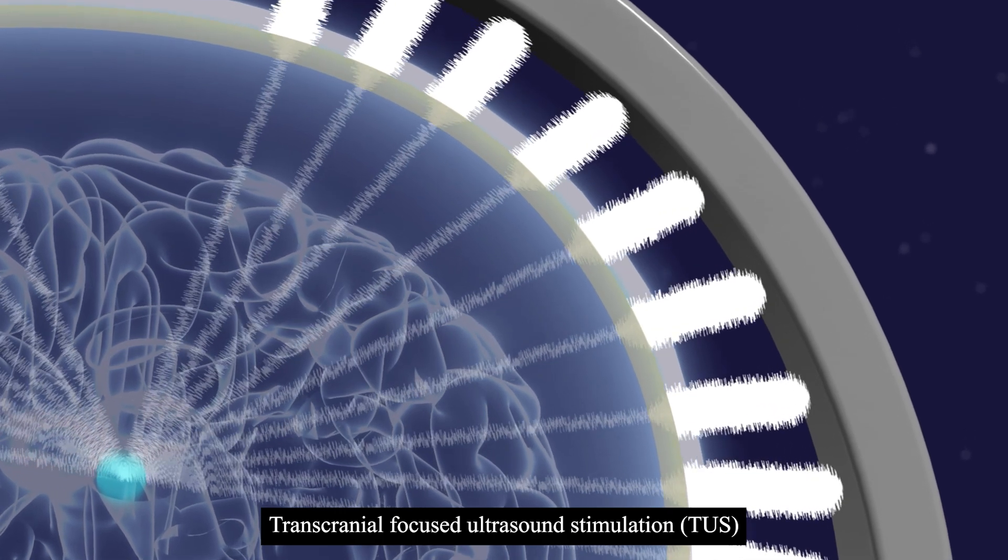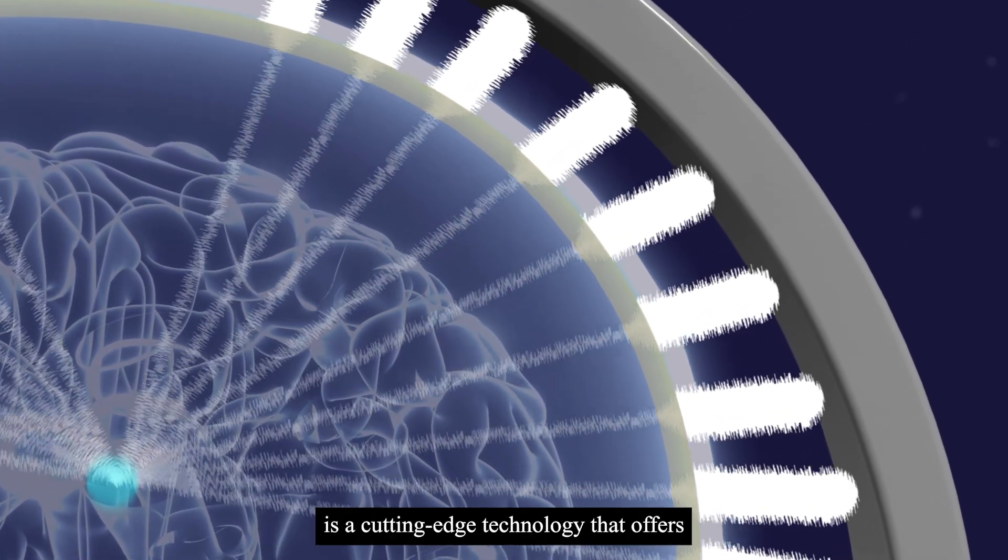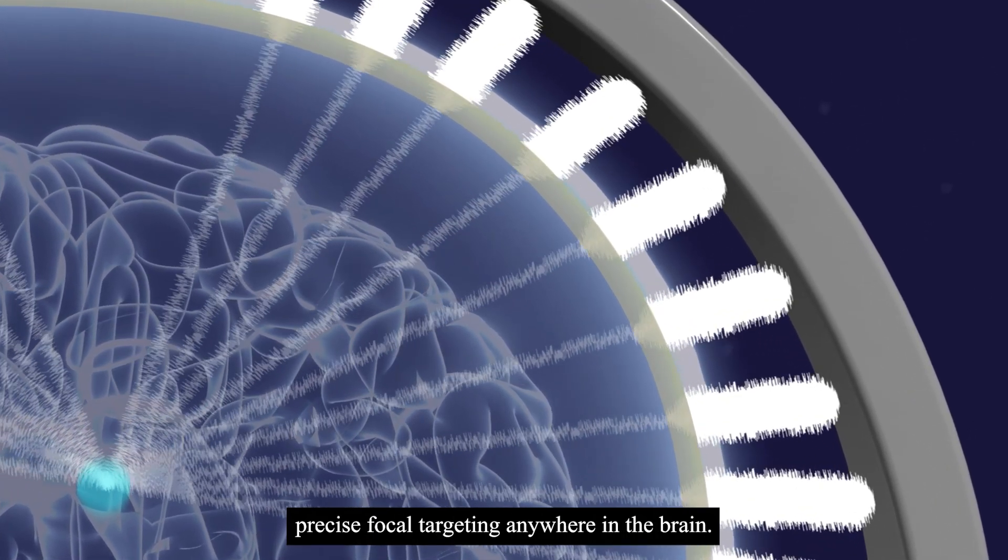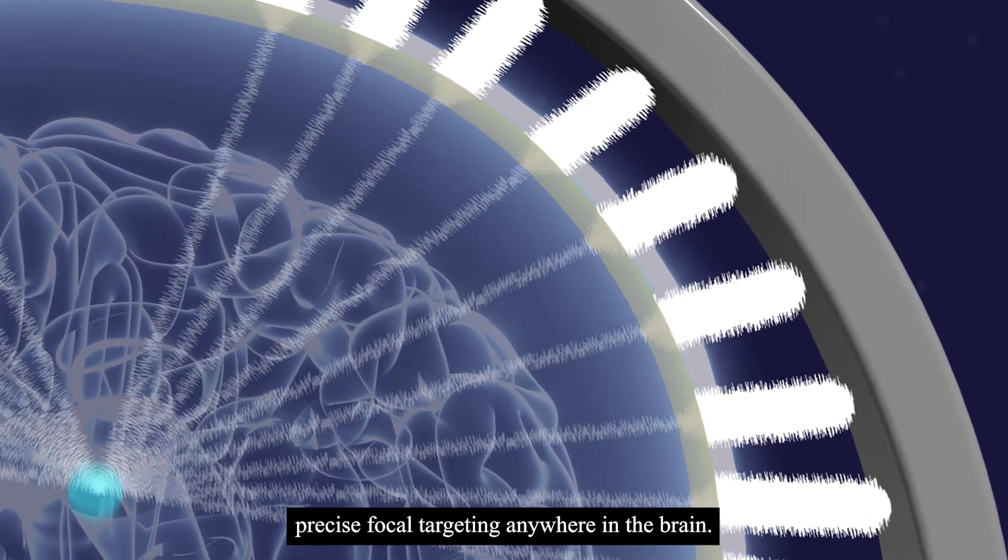Transcranial Focused Ultrasound Stimulation, TUS, is a cutting-edge technology that offers precise focal targeting anywhere in the brain.